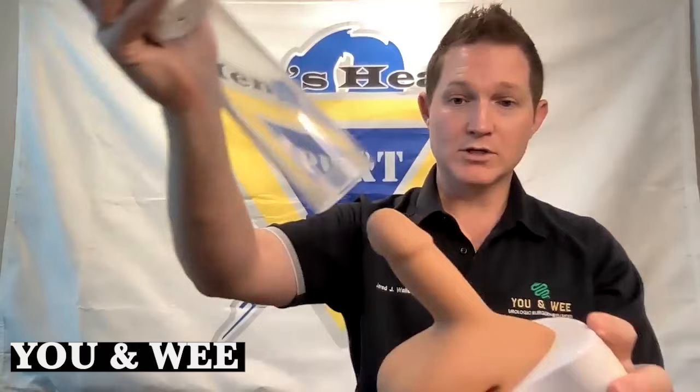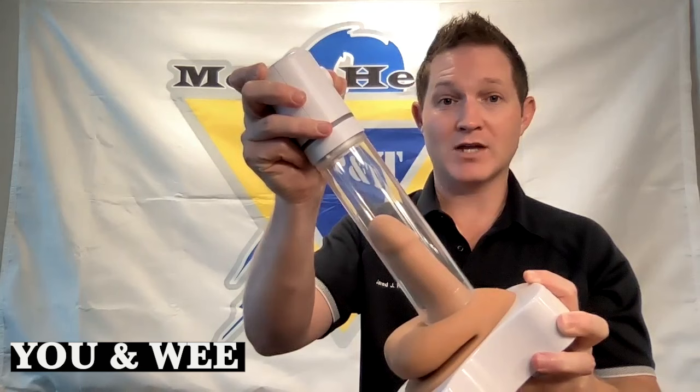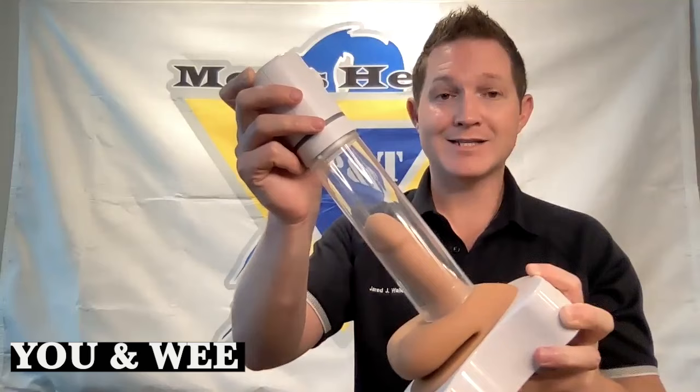In that setting, you're going to get the penis ready, lube up the skin and the end of the device, slide it over the penis, inflate it, and stretch it out. That pulls blood into the penis, elongates it, and makes it as girthy as it normally would be through normal physiology. You're going to leave it suctioned for up to 30 minutes, three to five times a week. You want to keep the penis stretched out, full of blood, for about 30 minutes three to five times a week — bringing in good nutrients and blood flow, stretching out the tissues, and maximizing the normal physiologic limits of the corpora cavernosa to prevent shrinkage and atrophy before you reach a functional solution.